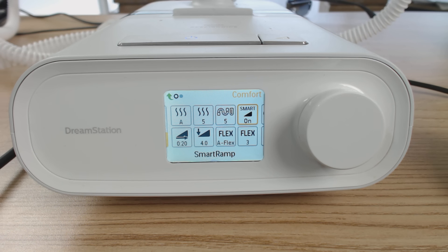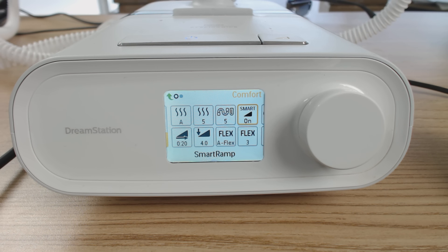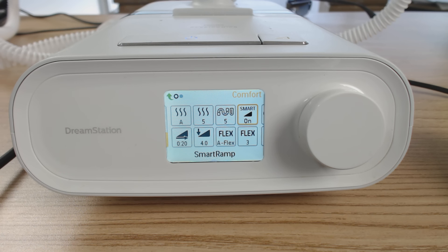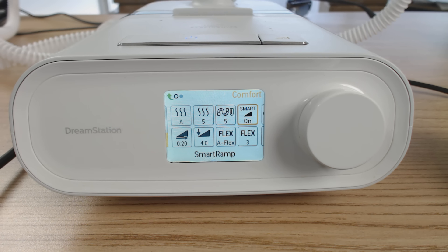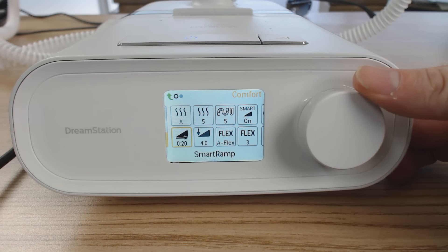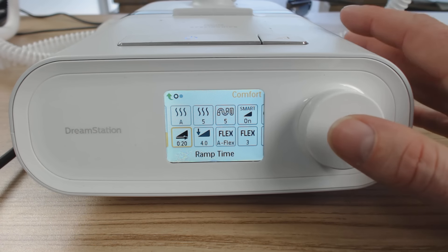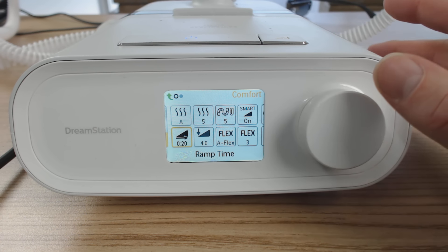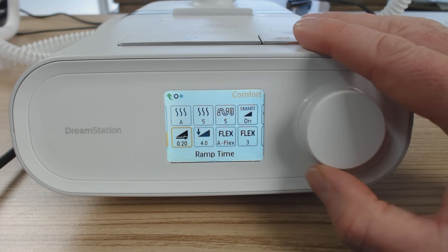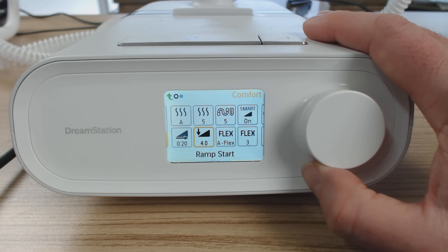The next one here is smart ramp. Smart ramp is generally used in fixed pressure CPAP mode. Instead of a normal ramp that gradually builds pressure over a set period of time to help you get off to sleep, smart ramp keeps the pressure very low and then when you're asleep it adjusts upwards — basically keeping the pressure low until it's required to treat the sleep apnea. Then we have ramp time and ramp start. If you're using a standard ramp in CPAP mode, the ramp time would run for 20 minutes and go from four to whatever your fixed CPAP pressure is set to. We don't really need to worry about these values because we're using automatic mode.